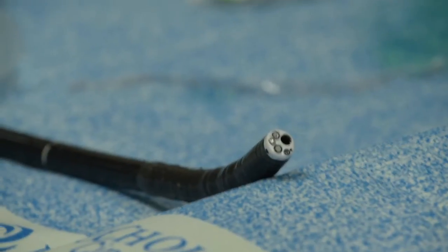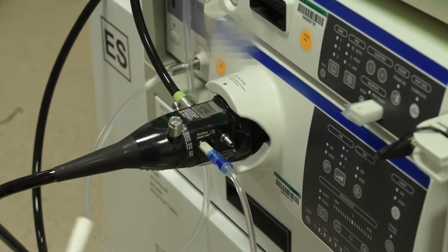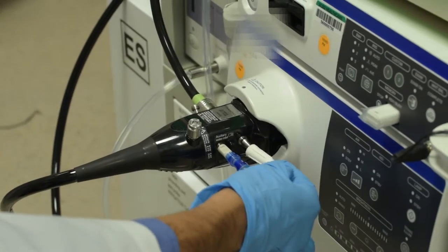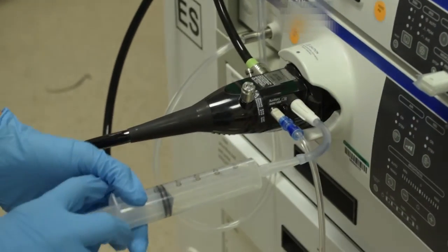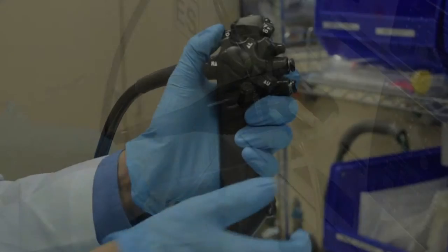We cover basic tasks including forward flushing or brushing the endoscope, and more advanced tasks including back flushing the endoscope, exactly how that happens, and what is being accomplished.